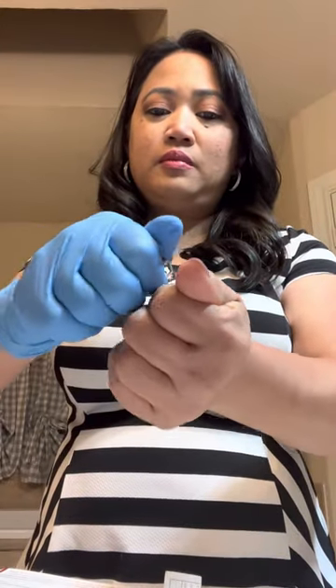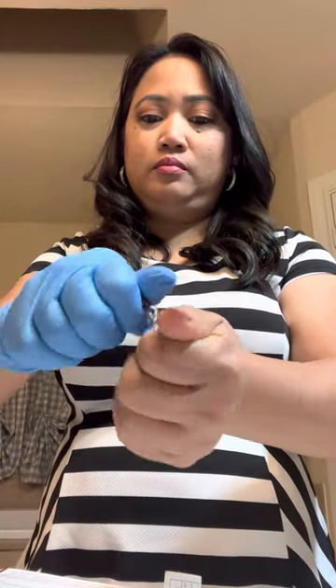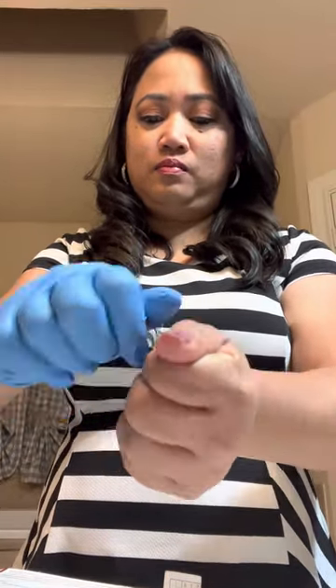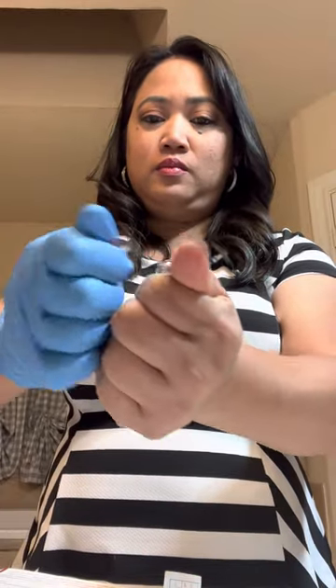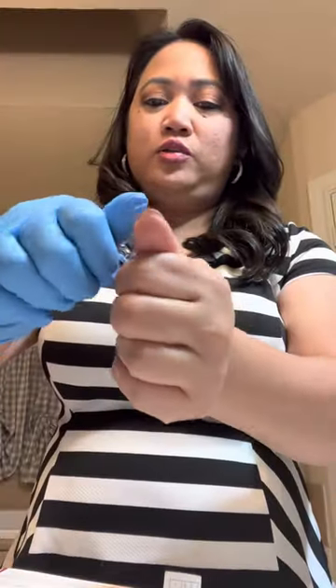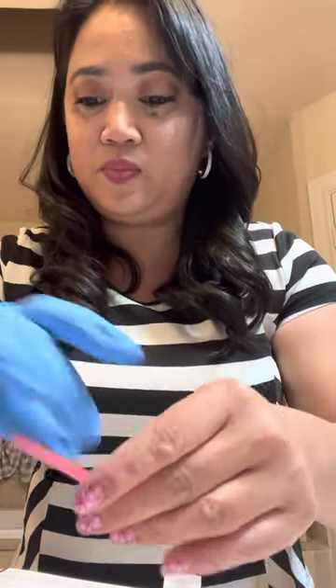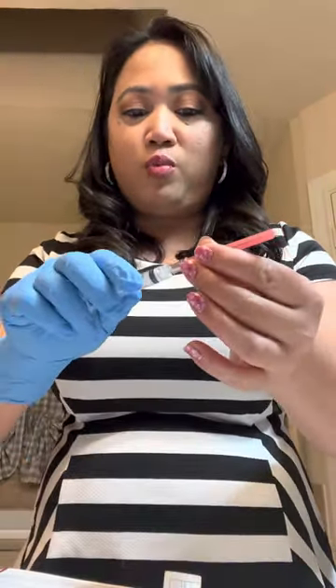But that's just me, so let's go ahead and get started. I'm going to do the other one just like that — that's very sharp, that's why I'm wearing gloves with this hand. You can wear gloves on both hands if you're more comfortable doing that.